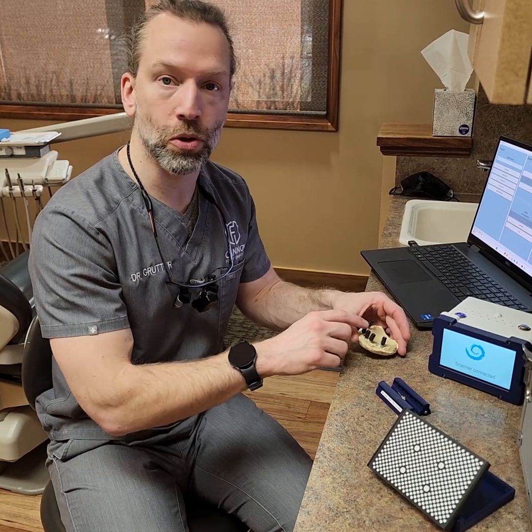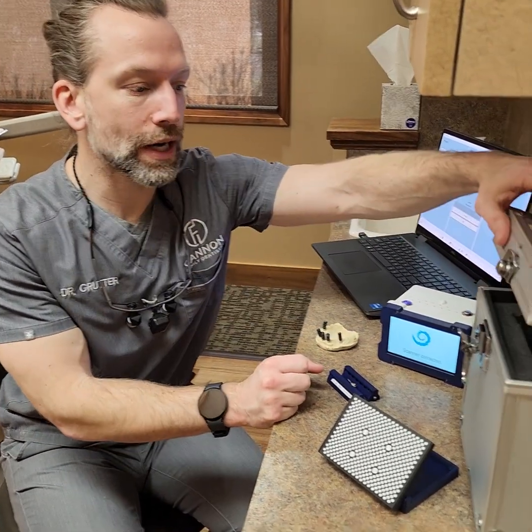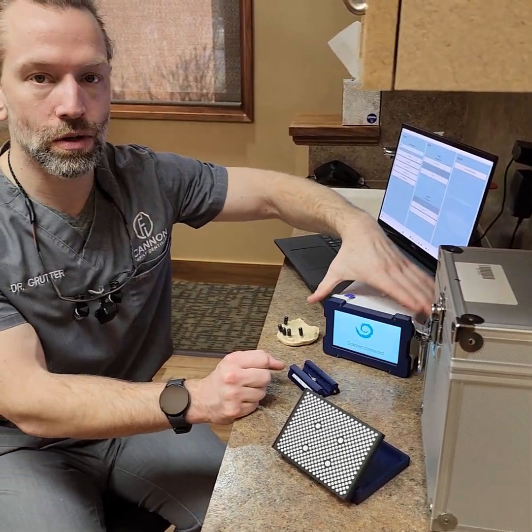Right now it works with the Nobel style, the more popular multi-unit connection — you just go right to the multi-unit. It also comes with this carrying case, nice and secure, to keep it protected, because you of course want to keep this safe.